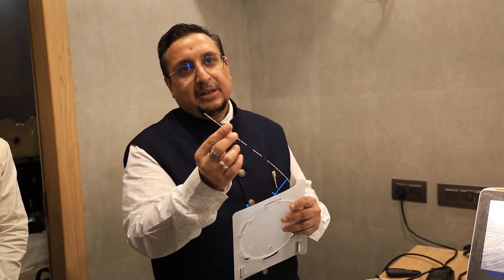This is the radial fiber. It emits energy in 360 degrees — that is why it is used in fistula, pilonidal sinus, and EVLA, because you need 360 degree energy delivery in these procedures.